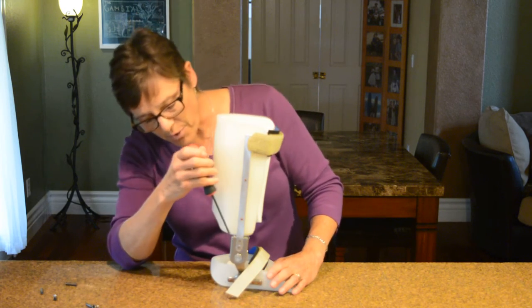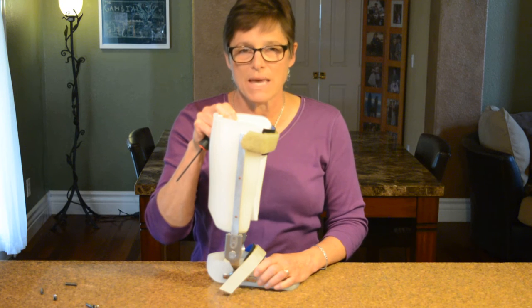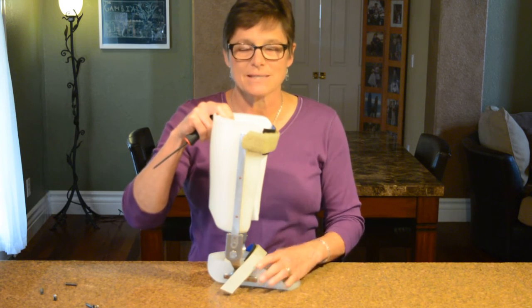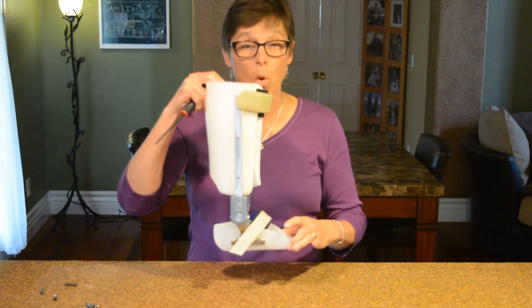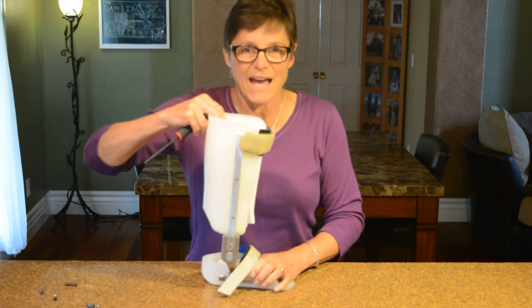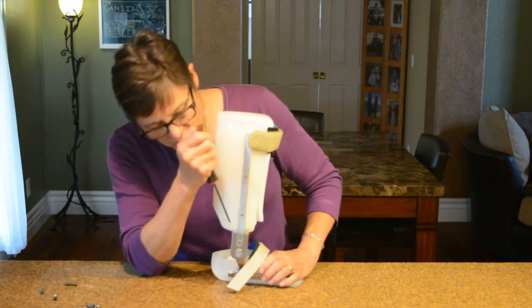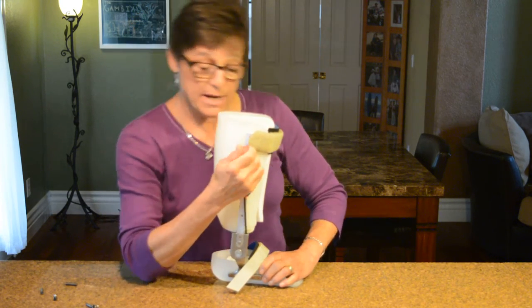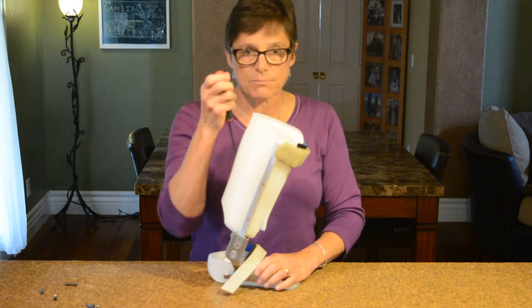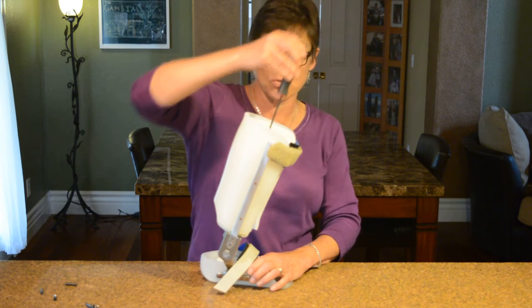The double adjustable AFO gives you all of that adjustability by just tightening or loosening these screws. A lot of people think the primary reason for an AFO is to hold the foot up during swing, but the AFO has so many more stance stability opportunities. It is primarily a stance stability device — and secondarily we get the benefit of holding the foot up in swing. It provides a dorsiflexion stop, a plantar flexion stop, and tibial stability when there is weight on the foot.